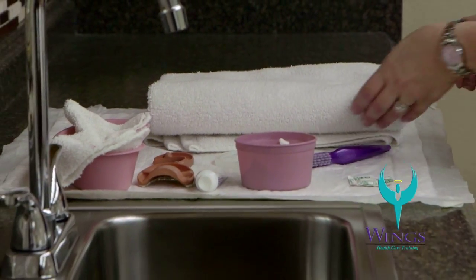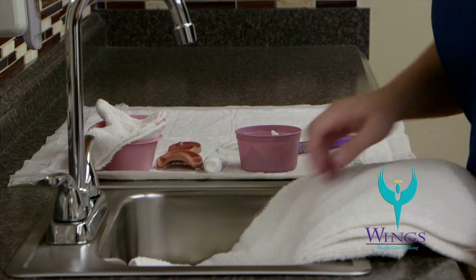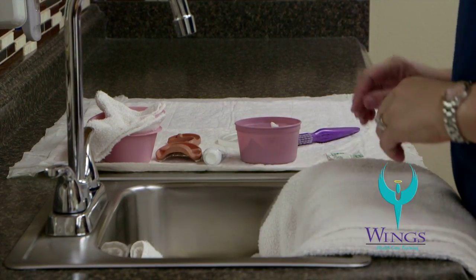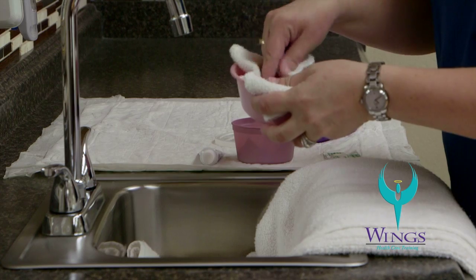To begin the skill, you will apply gloves. Next, take your towel and place it inside the sink to create a cushion at the base of your sink. You will go and collect the dentures from the resident and place the dentures in the emesis basin.